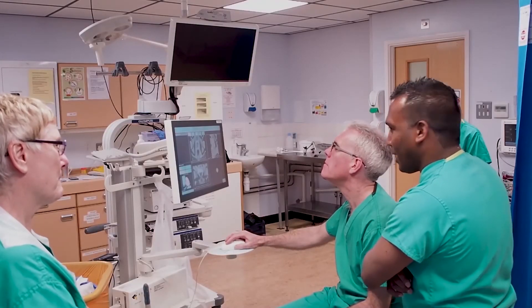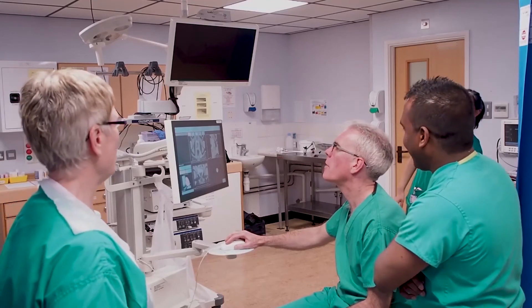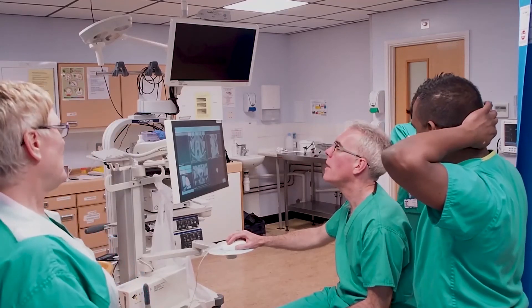We found in our MDT that we are not only hitting the target with a much greater frequency, but also taking fewer biopsy cores in general. I have done over 150 fusion template prostate biopsies, and not a single patient has been readmitted to hospital as a result of sepsis. Patient reported outcomes on pain are also strongly favourable. It does rely on a good team around you — having somebody talking to the patient and a nurse assisting — but with a good team the procedure can be relatively pain-free and well tolerated by the patient.